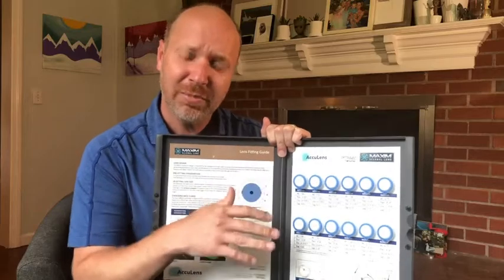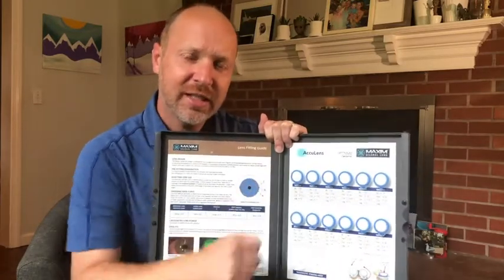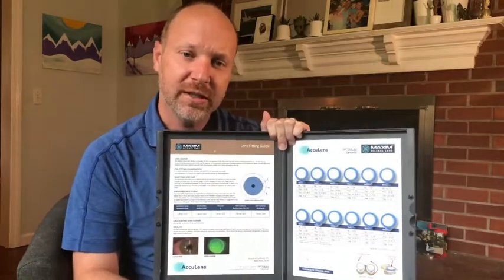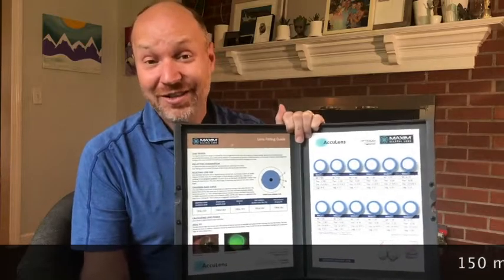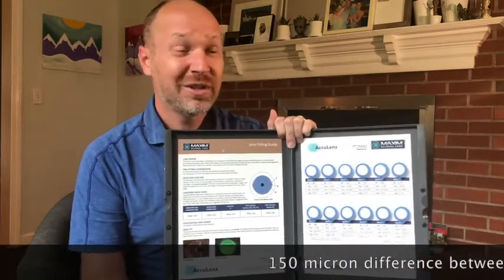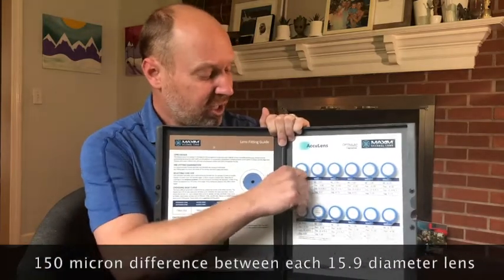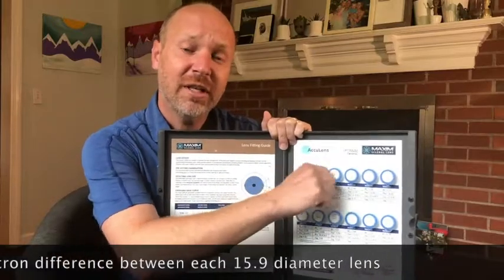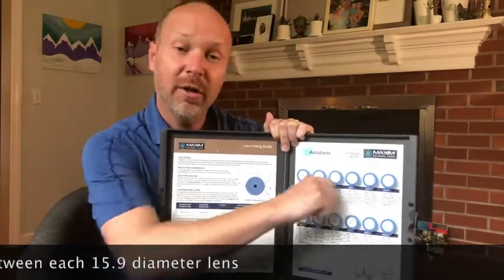I'm going to make it even simpler for you. This top row — the difference between each lens is about 150 microns. Give or take 10 or 20 microns, but honestly, 10 microns? The human hair is 90 microns, so guessing between 10 or 20 microns is not that big of a deal. So consider each of these as having a 150 micron difference between each lens, whether you're going steeper or going flatter.